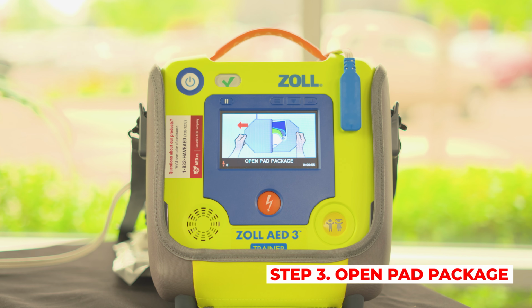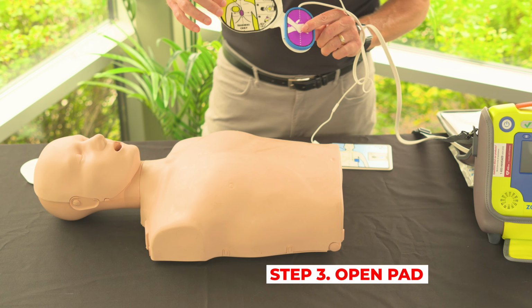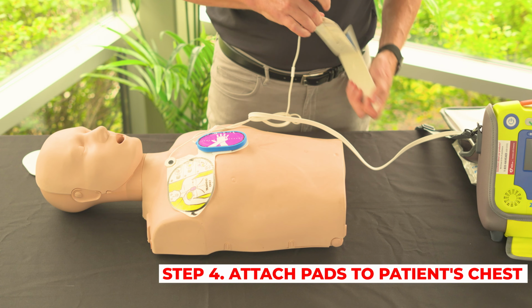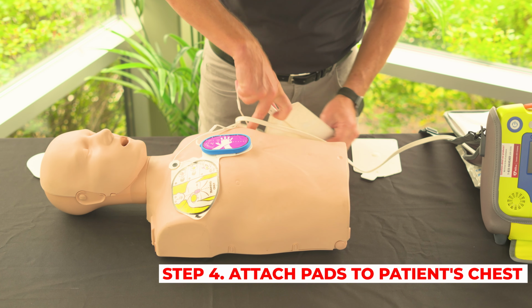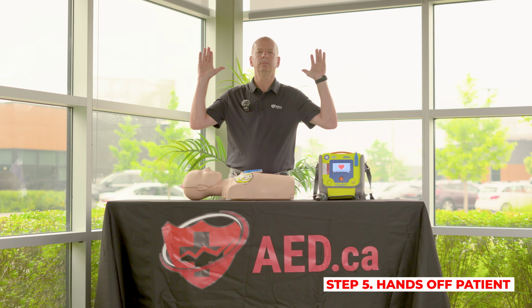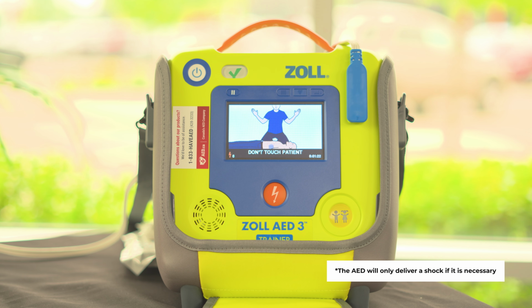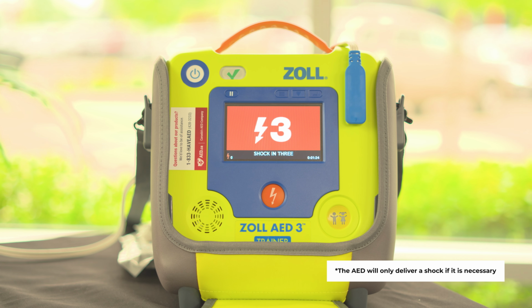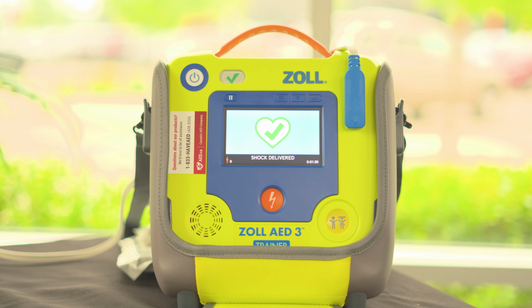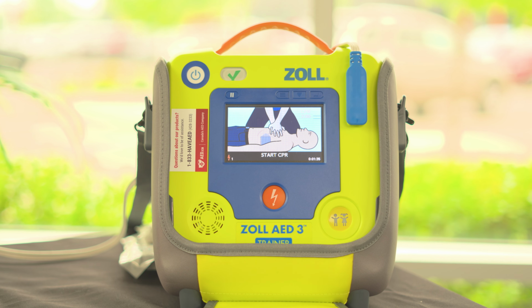Open pad package. Attach pads to patient's bare chest. Don't touch patient, analyzing. Shock advised. Don't touch patient. Shock will be delivered in 3, 2, 1. Shock delivered. Start CPR. Push to match the tone.